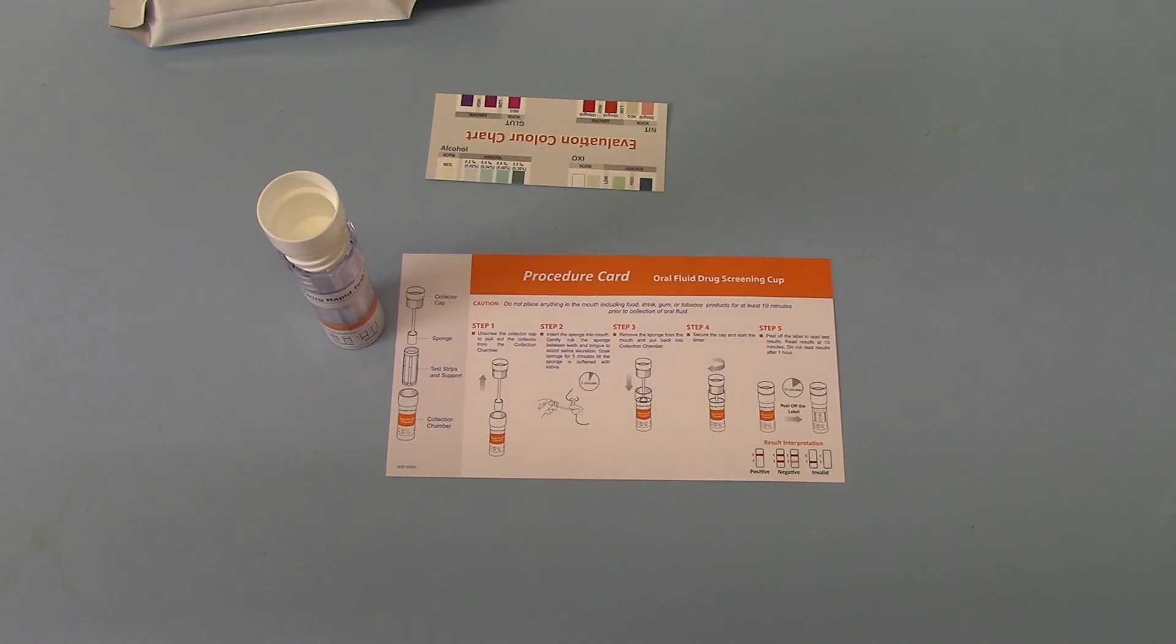In the following part, what we'll do is run one of these tests for you and run you and guide you through interpretation of the test results. Let's go.